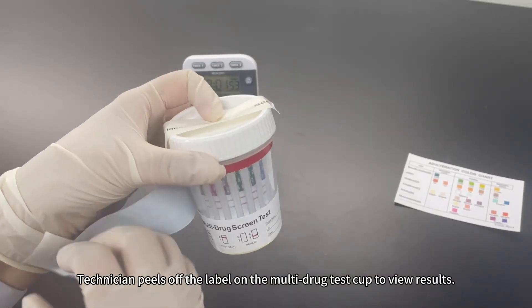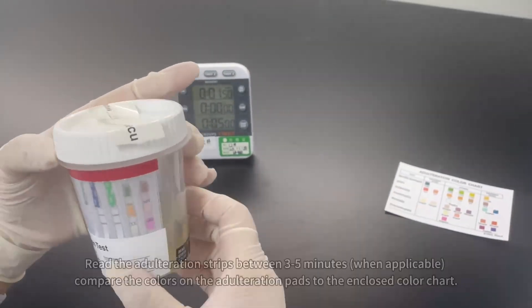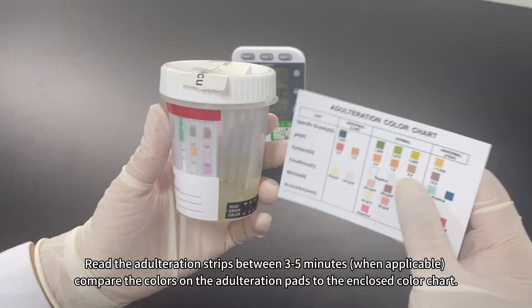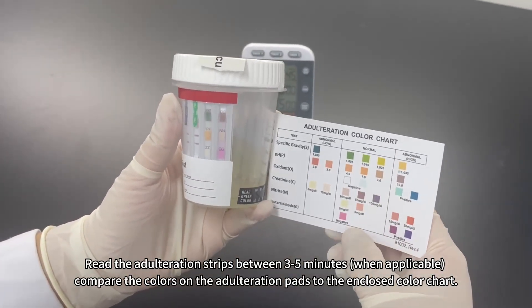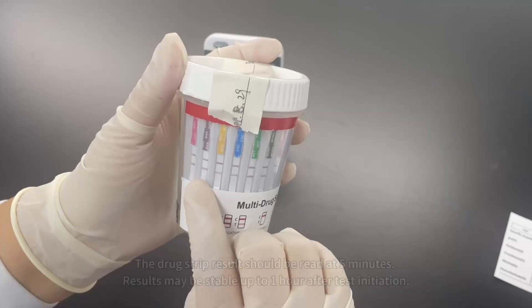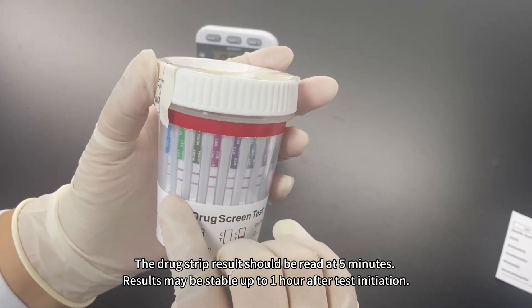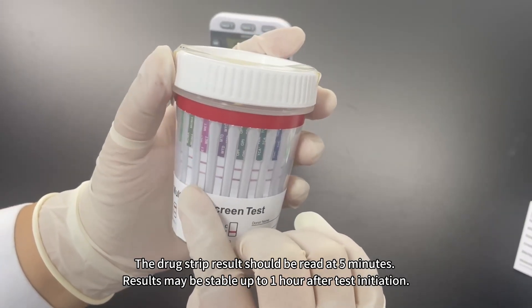Technician peels off the label on the multi-drug test cup to view results. Read the adulteration strips between three to five minutes when applicable. Compare the colors on the adulteration pads to the enclosed color chart. The drug strip result should be read at five minutes. Results may be stable up to one hour after test initiation.